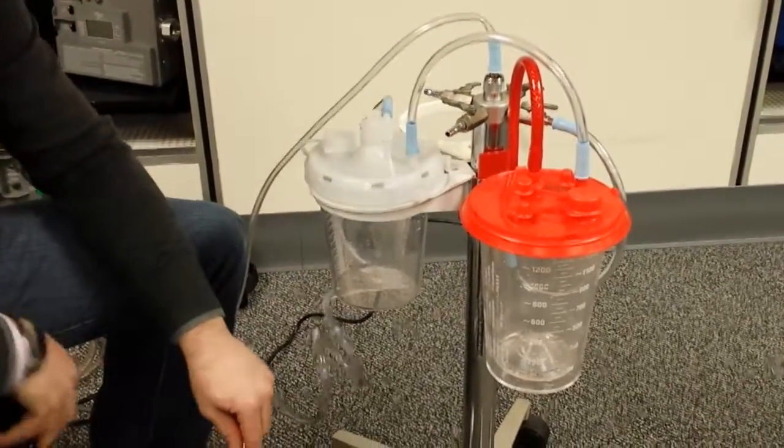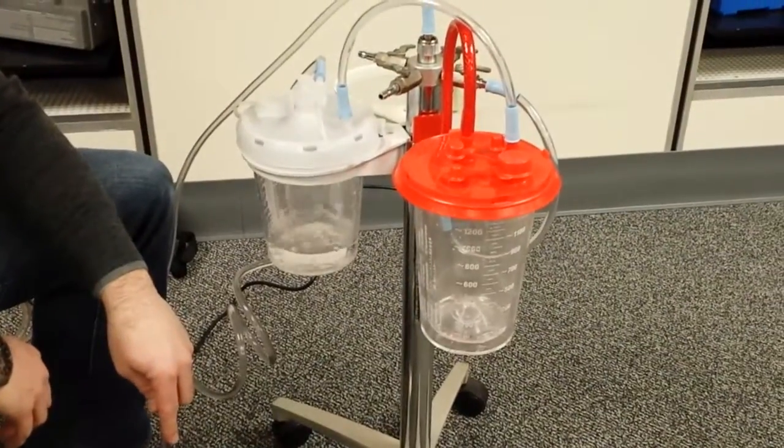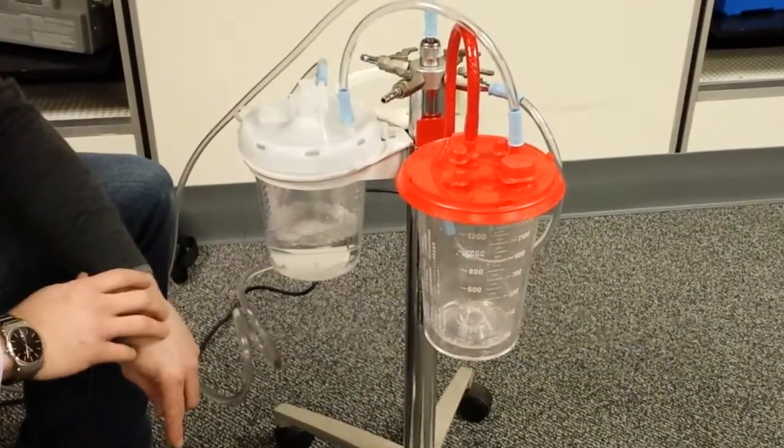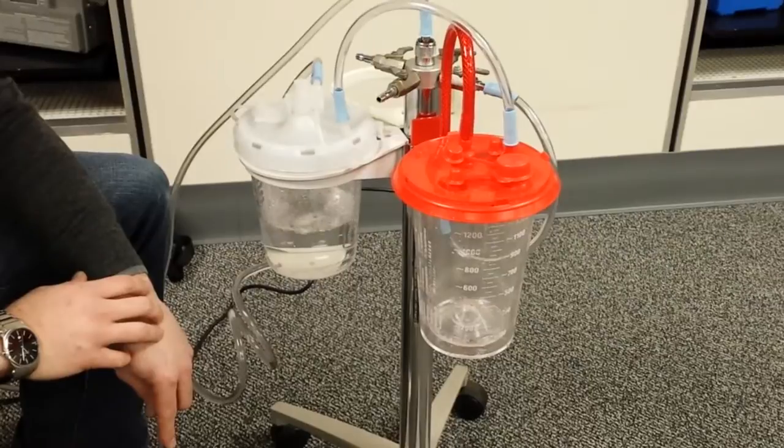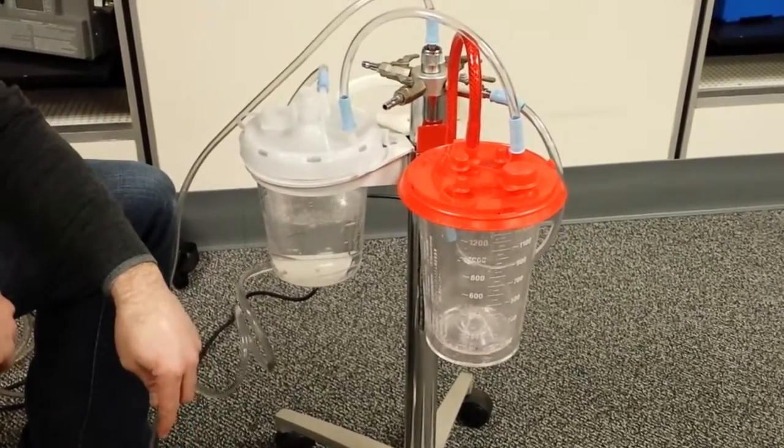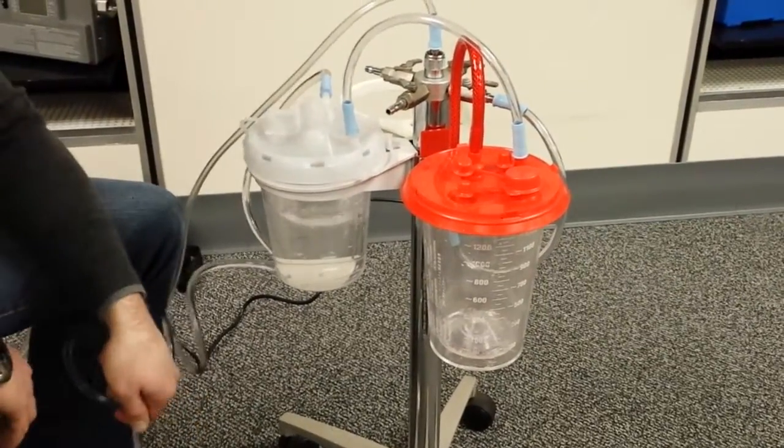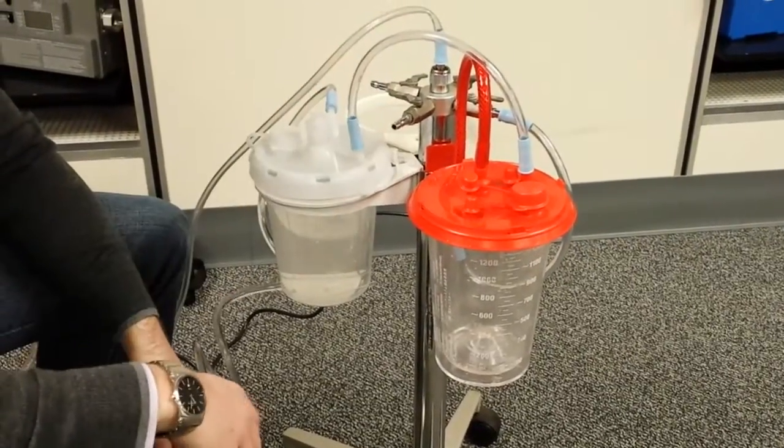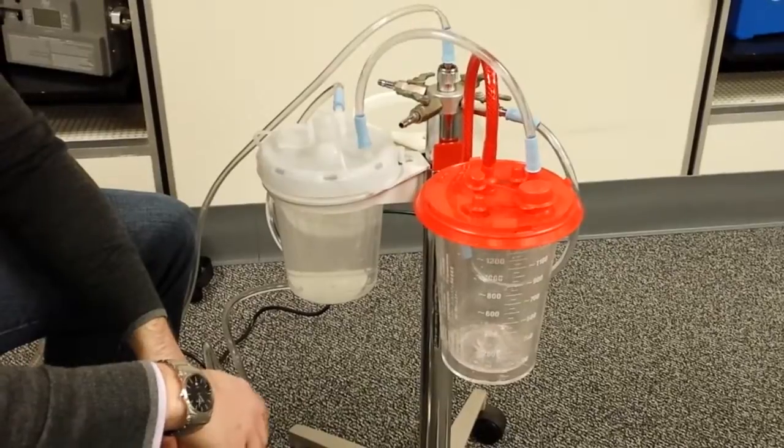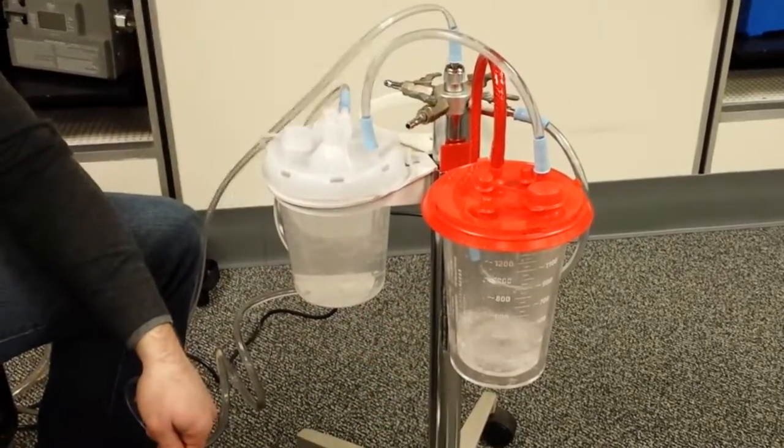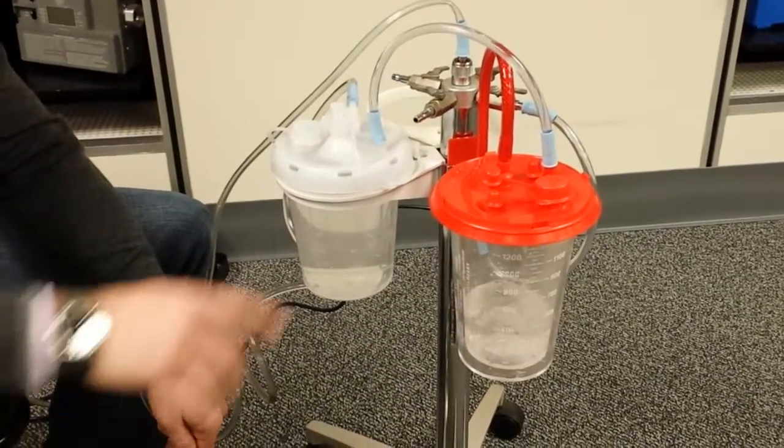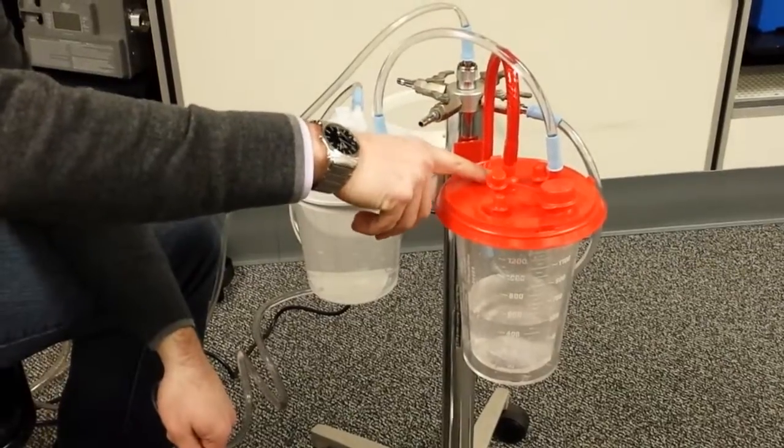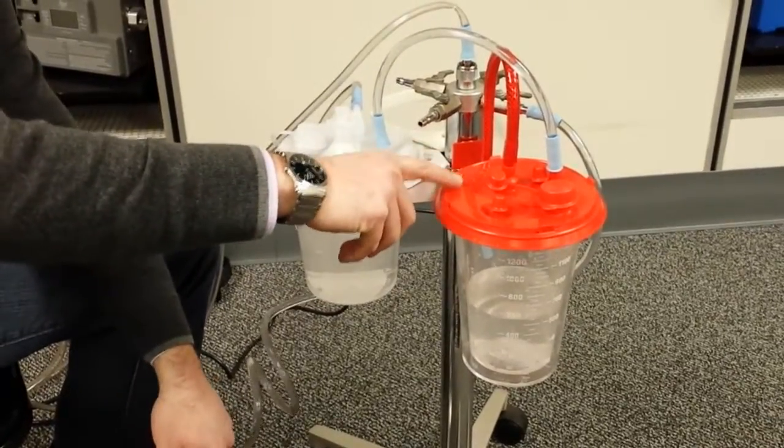But what you'll notice is then we start to fill the canisters. And it should only take a minute, but you'll notice that once this one fills, you'll notice it come up through the tubing here and start to fill this one. And then the key point here is making sure that you always have a filter before you go to your line.